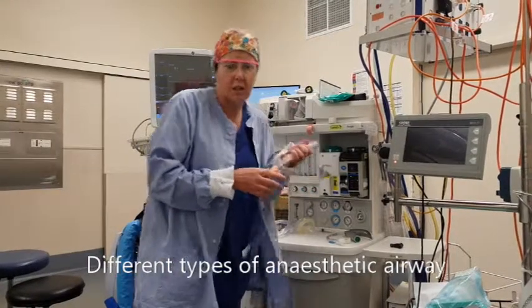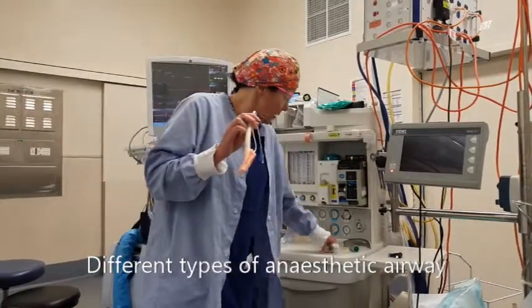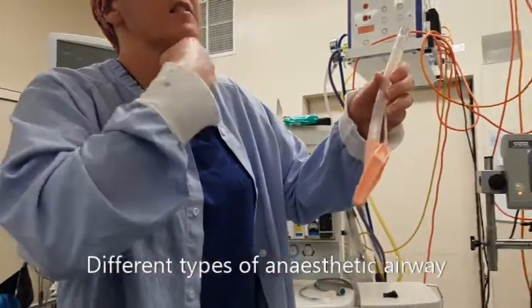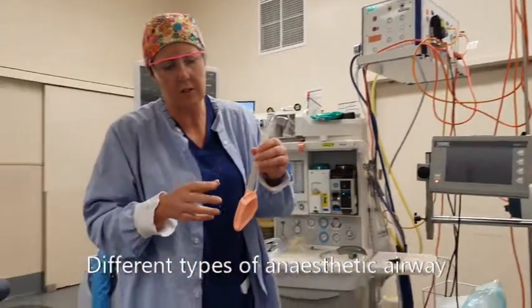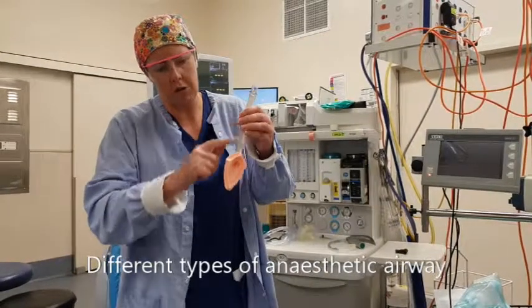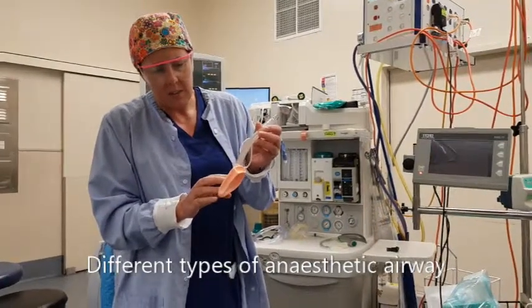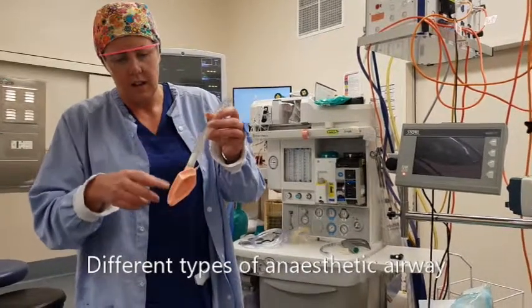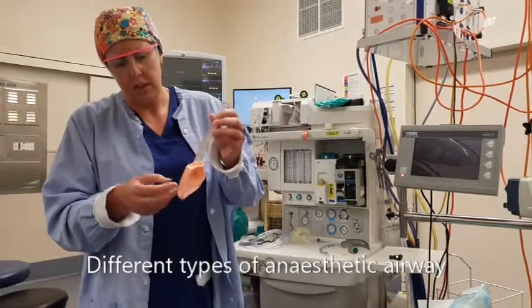Once the drugs are working and you're a little deeper asleep, we can put in two different breathing tubes. This one is the laryngeal mask, and this one is the endotracheal tube. The laryngeal mask is designed to sit above your vocal cords — it slides down your larynx, sits above the cords, and we can hook you up to the ventilator. It holds your soft tissues open, maintaining an open airway to your lungs. It's the easier device to insert, with a potentially lower risk of airway damage.